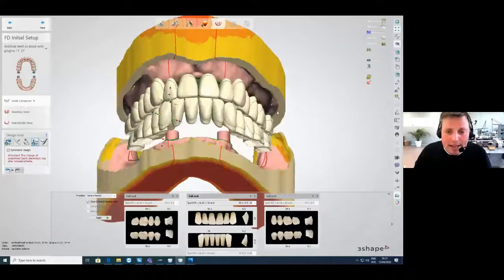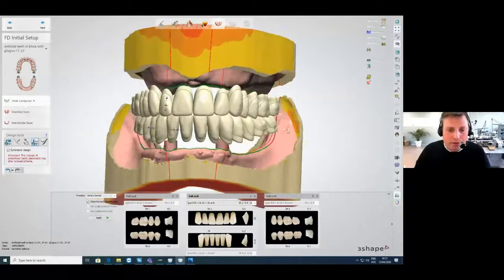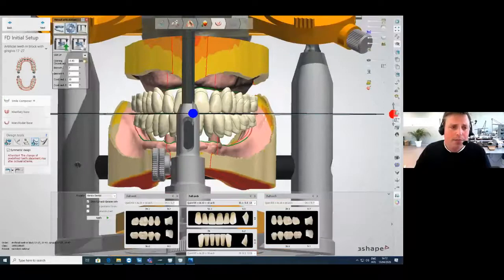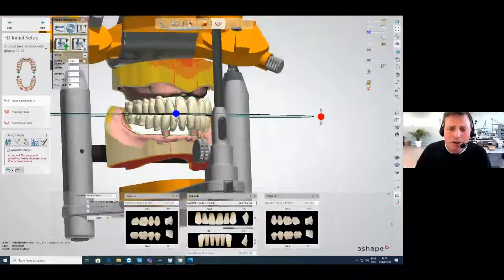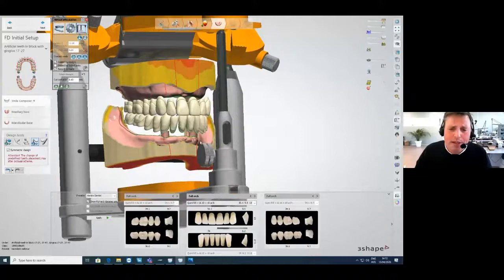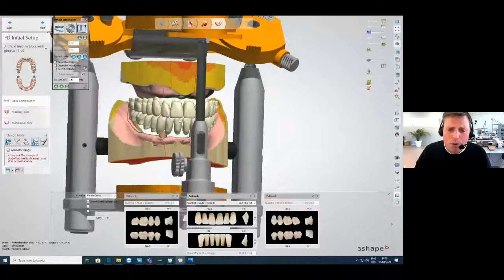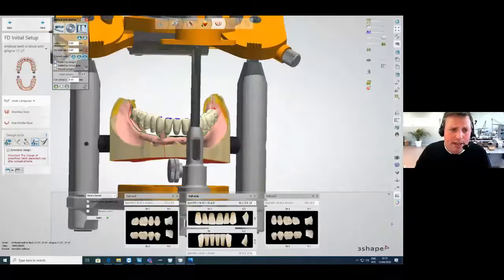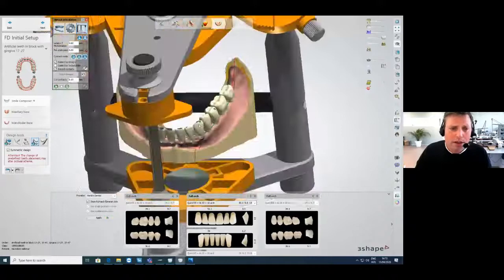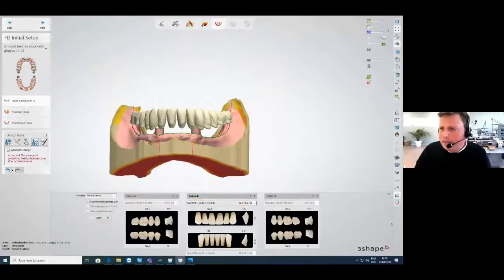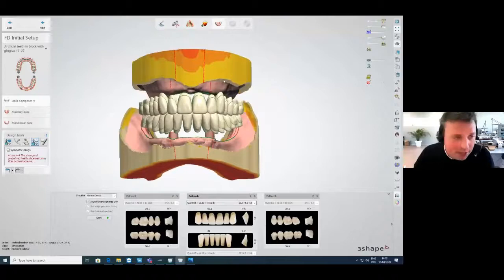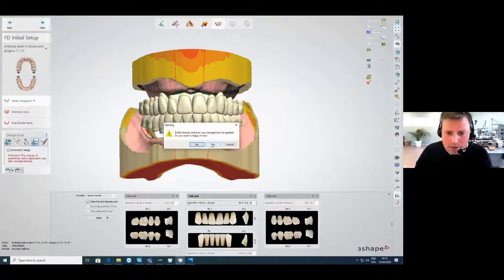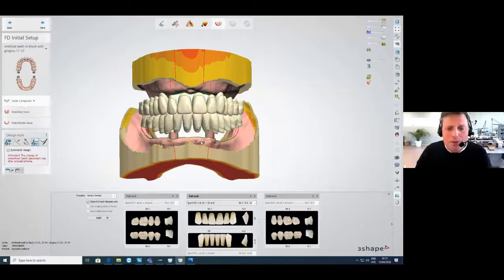Place the complete block of upper/lower teeth in the perfect spot, then make them bigger or smaller to close the gaps. You can also open the articulator and check movements in the articulated pattern. You'll see interferences on the lower teeth highlighted in blue, which you can adjust. You can display movements in color, just as in conventional workflow. Then we go to the next step: creating the maxillary base — creating the whole denture.